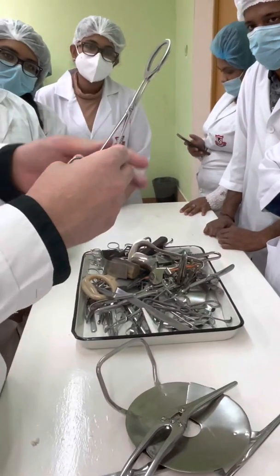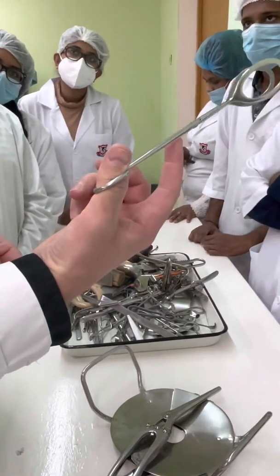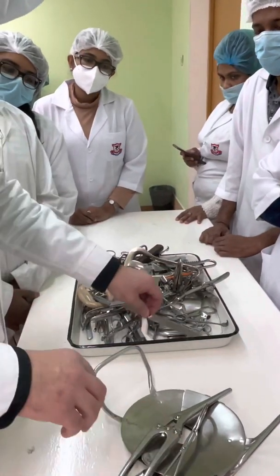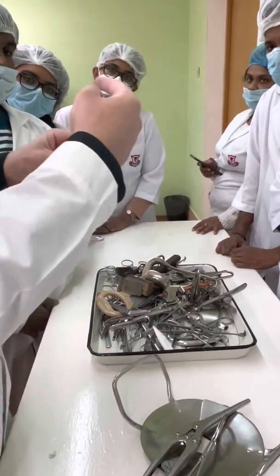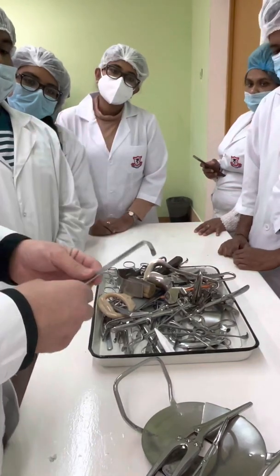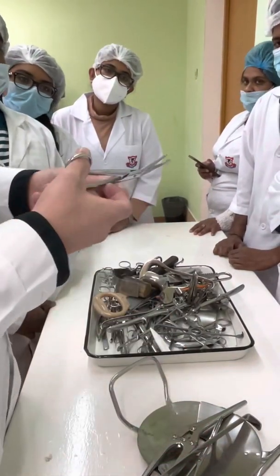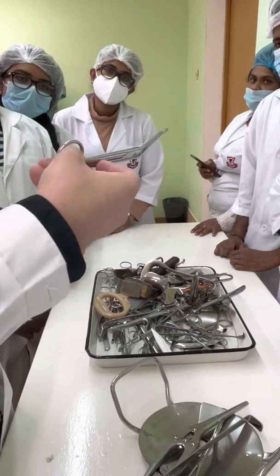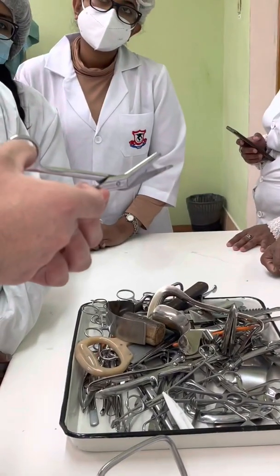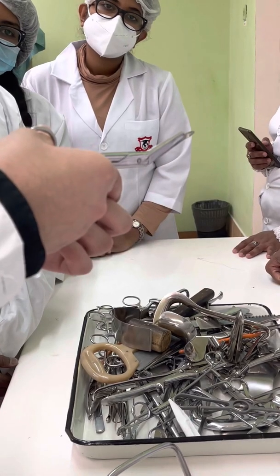Here, forceps for the gallbladder. We use it during cholecystectomy — open cholecystectomy. Farabeuf's C-shape plate hook for dilation of the wound. Here, specific scissors with an olive tip — the scissors for enterotomy. It protects the back wall from being cut.